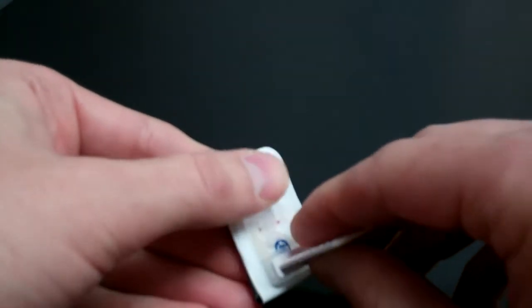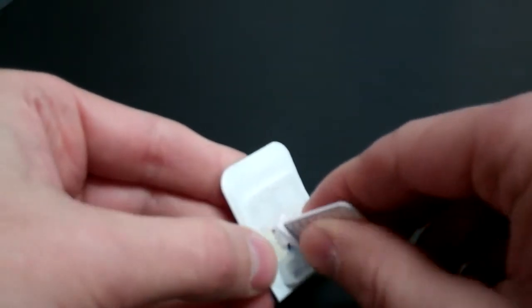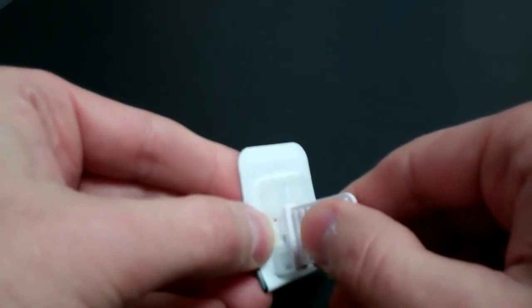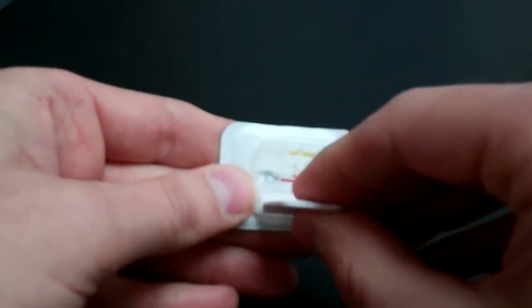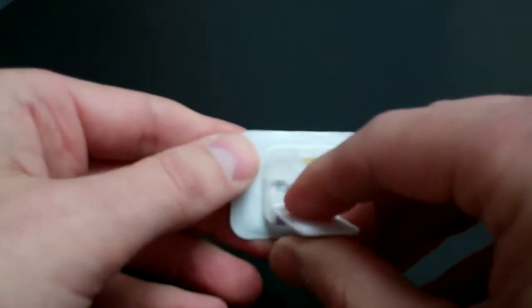Here we're in an anterior periapical. To get to a posterior periapical we would just go to the center rotating slot, slide our tab down, slide it over a little bit to lock it, and there would be a posterior periapical.